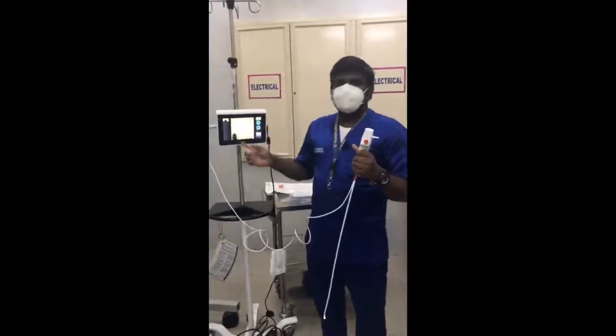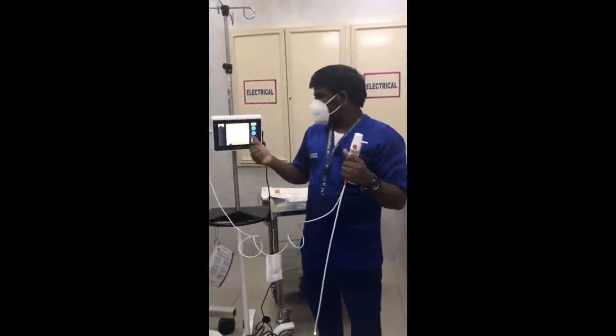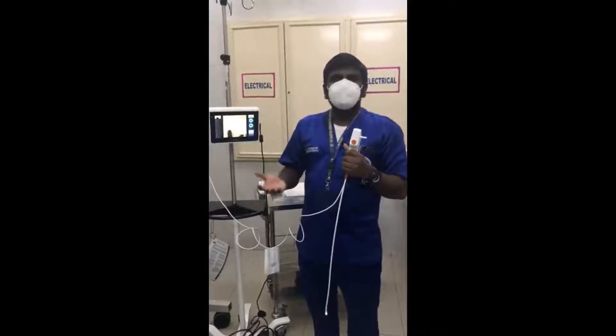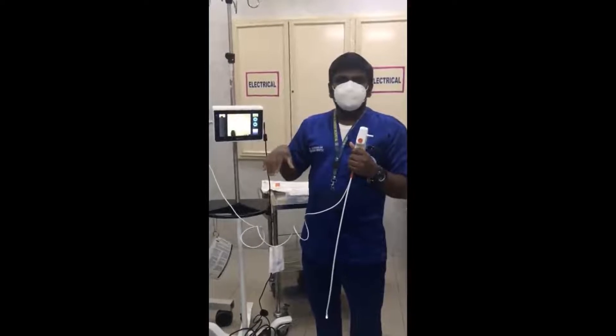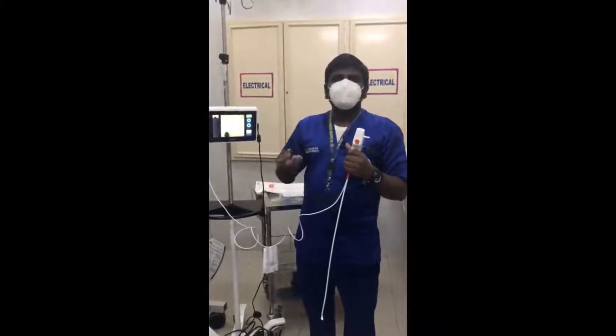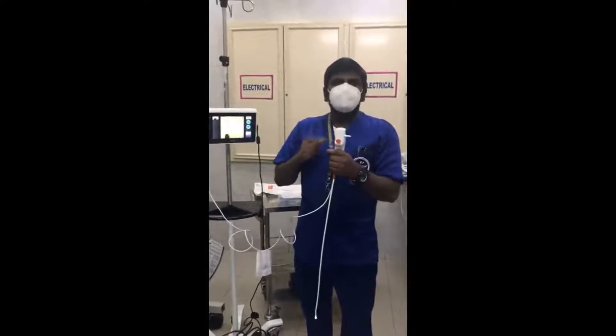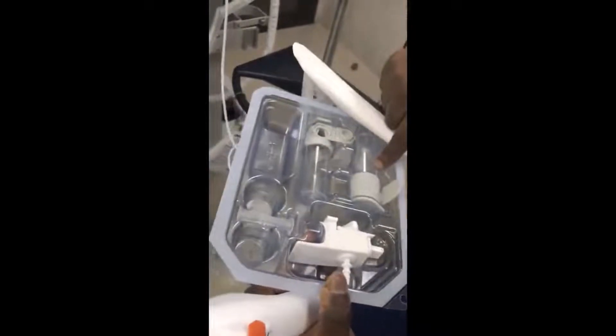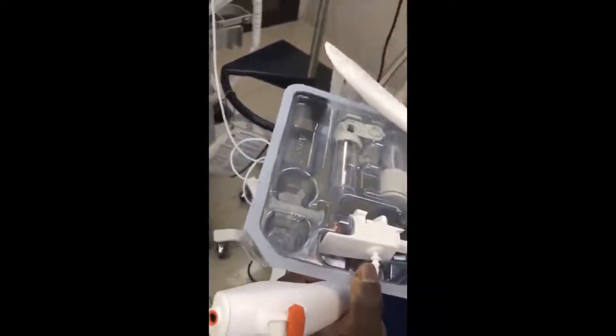Now the doctors want to take samples from the lungs - bronchoalveolar lavage or similar - for cultures. We need a separate broncho sampler kit for the disposable AMBU scope. We have the kit called the AMBU broncho sampler. It has one connector and two chambers. I will now teach you how to attach the port and sampler.